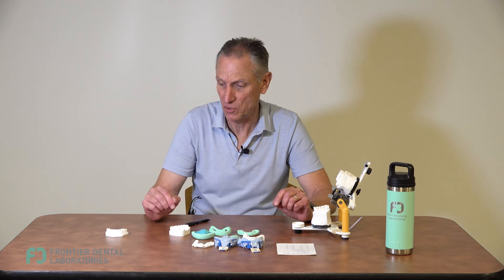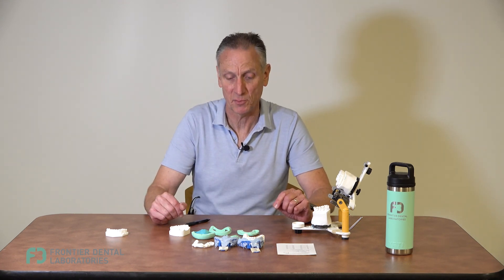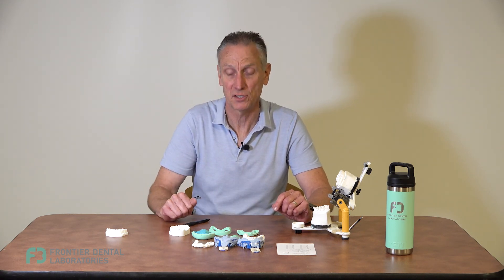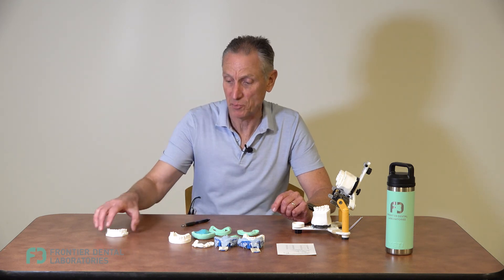We call this the horseshoe putty bite and we'll provide it on every case with a bite opening. Any questions at all, you can ask the smile designer you're assigned to. We want to make this process as simple and pleasant as possible — this is obviously a harder appointment, but it's very gratifying when the patient sees their new smile. Please let us know if you have any questions. Thank you.